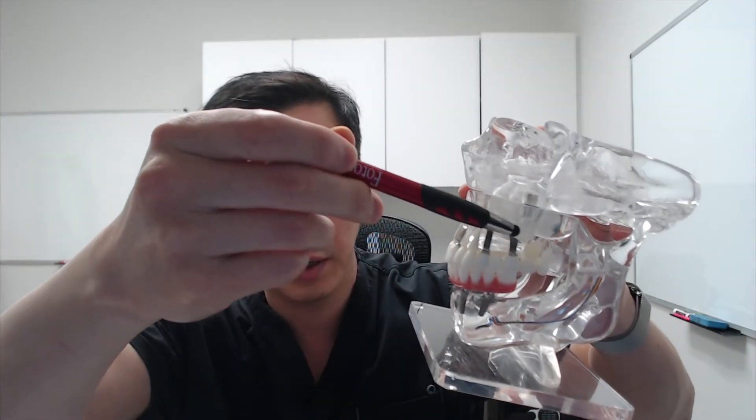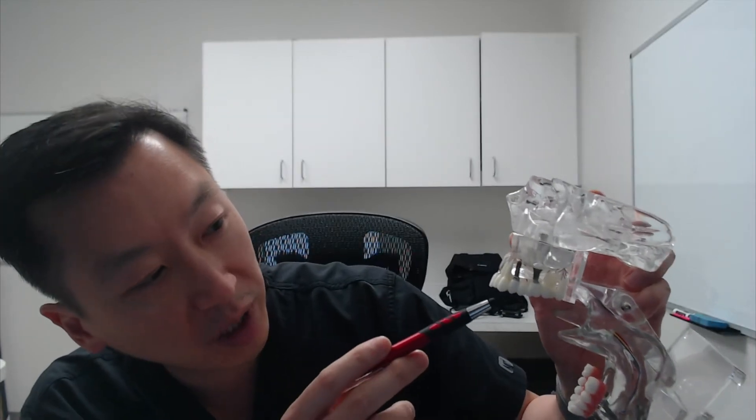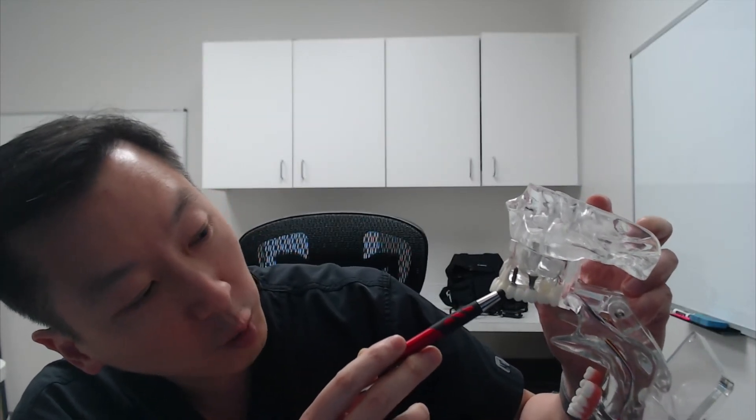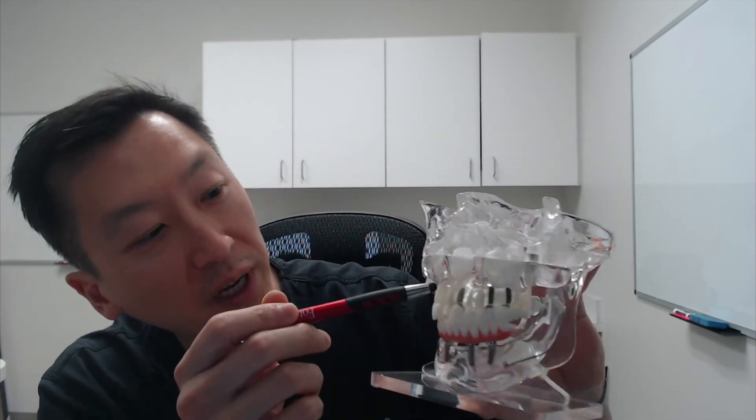Another application: I see two dental implants on the upper jaw. These two dental implants are used to replace a three-unit bridge — what we call a dental implant bridge. We have two implants anchoring one, two, three teeth into the jawbone to replicate those three missing teeth. So two implants in your jawbone are able to replace three missing teeth. On the front, we have one single dental implant that anchors that one single crown.